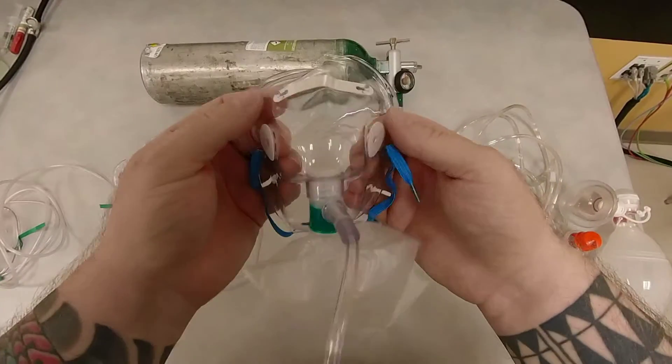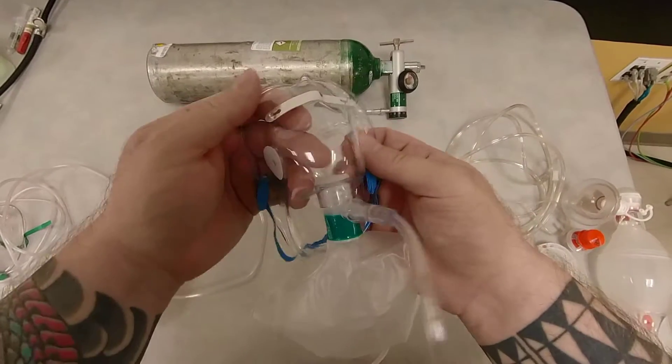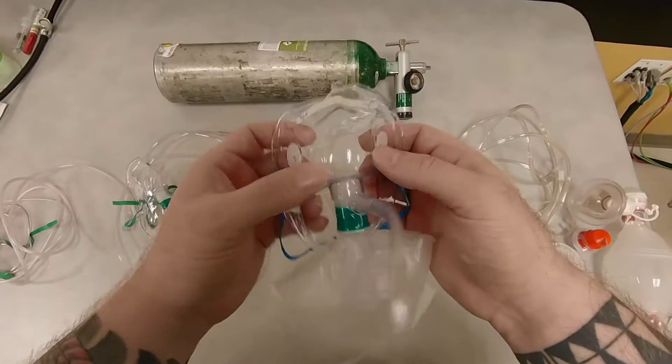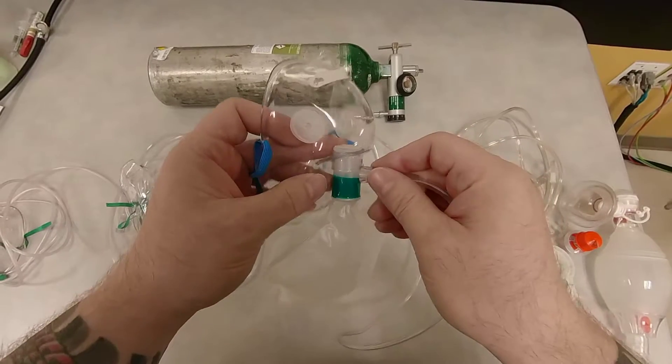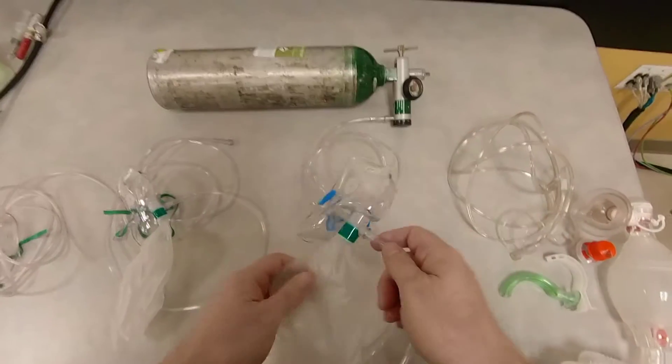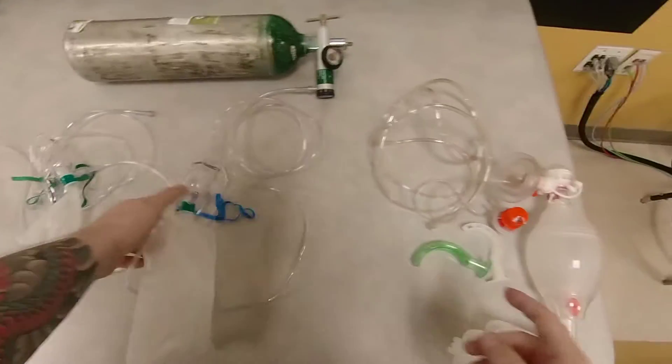Granted, patient is taking adequate breaths and has adequate rate to generate sufficient minute ventilation. Minute ventilation is respiratory rate times tidal volume. And now let me move over to a BVM.